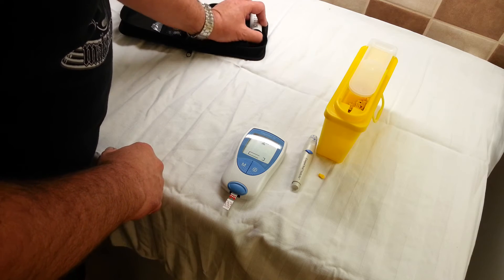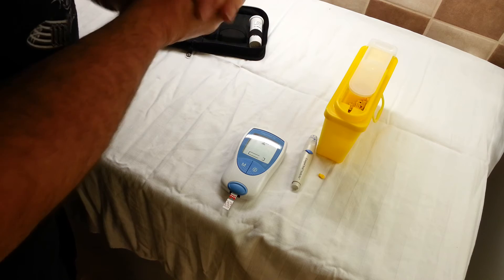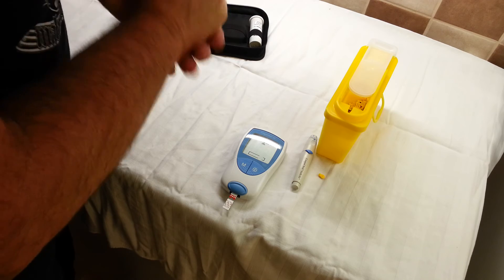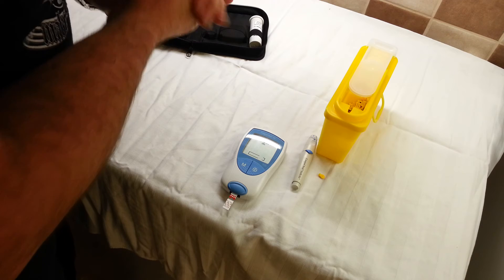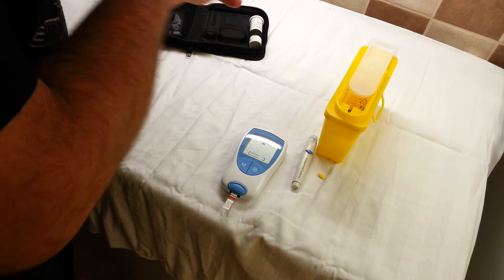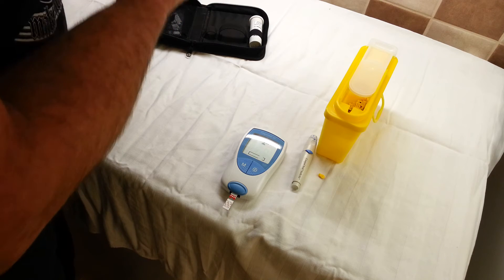At this point the machine will ready itself. It pays to warm your hands up and make sure that by the time it bleeps I'm ready. This bit takes just a couple of minutes, and then as soon as it beeps we're ready to take the blood sample.